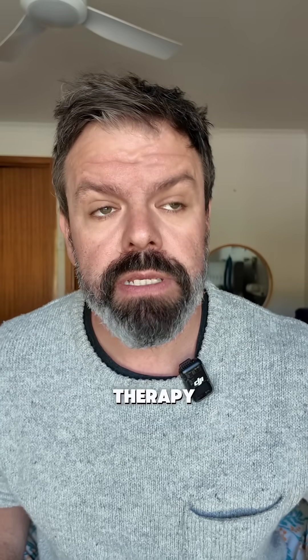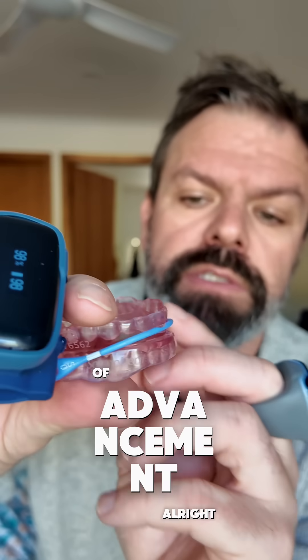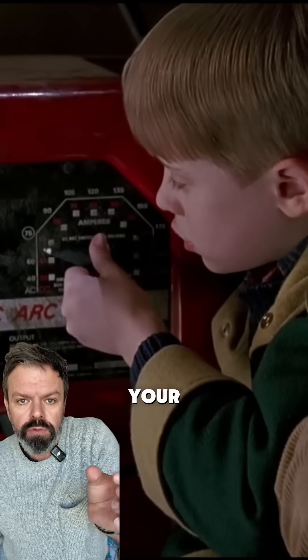All sleep apnea therapy is titratable. With your CPAP, you've got your pressure. With your MADs here, there are different levels of advancement. This one has the little bands — the bands come in different sizes. You put a new band on, it pulls your jaw forward. That's how it works. And with Inspire, there are different voltage levels — you're turning up your little controller there, cranking up the voltage.